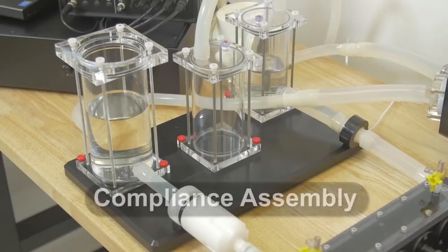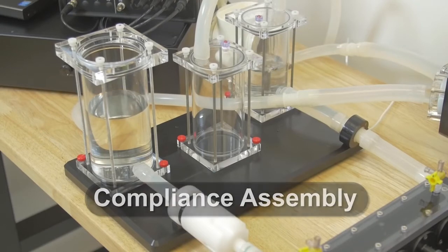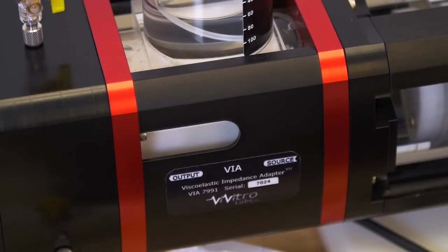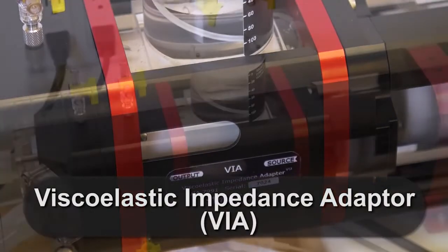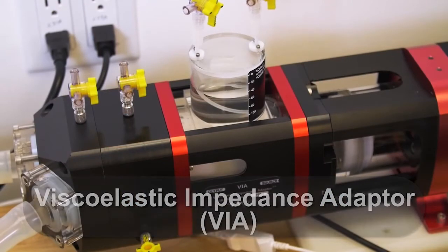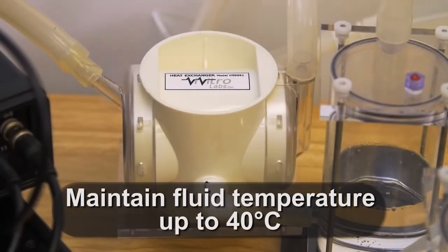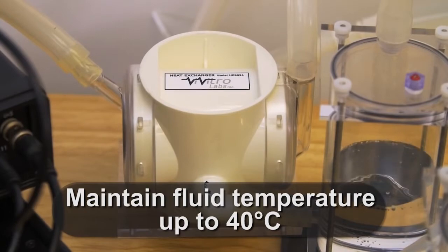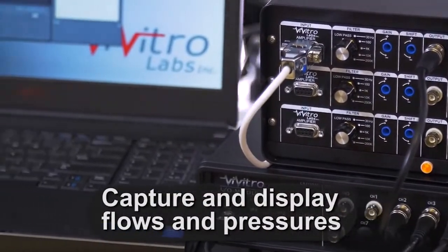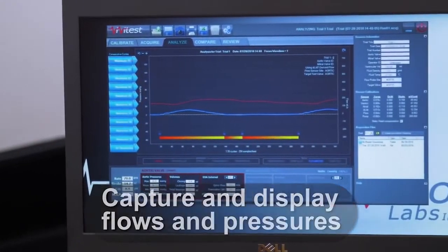A compliance assembly provides adjustable air volume to allow system tuning for a wide range of pressure conditions. The optional viscoelastic impedance adapter provides input waveform compliance to create physiological pressures and flows. An optional heating system maintains physiological fluid temperature. The data acquisition system captures and displays flows and pressures from any point in the system.